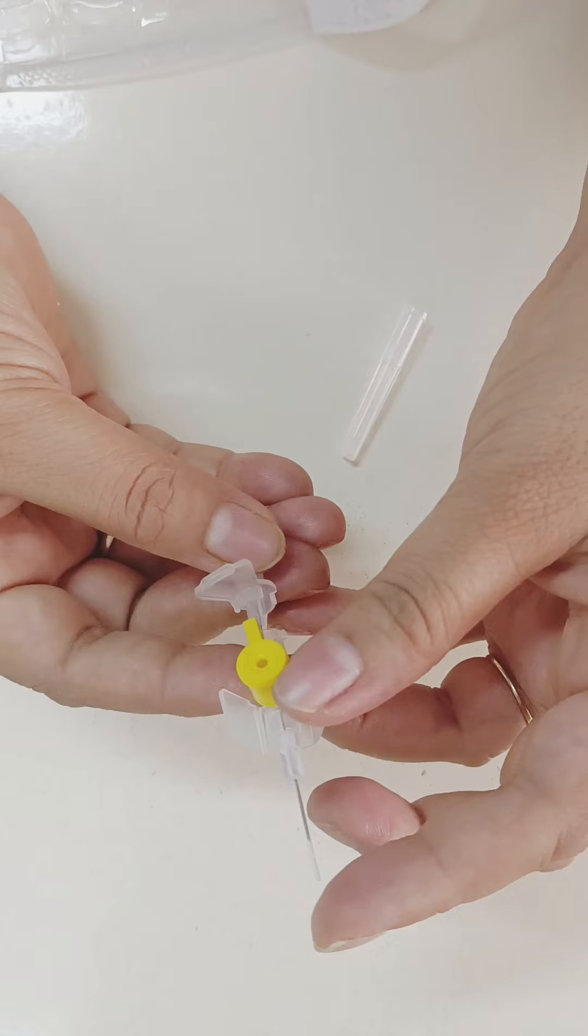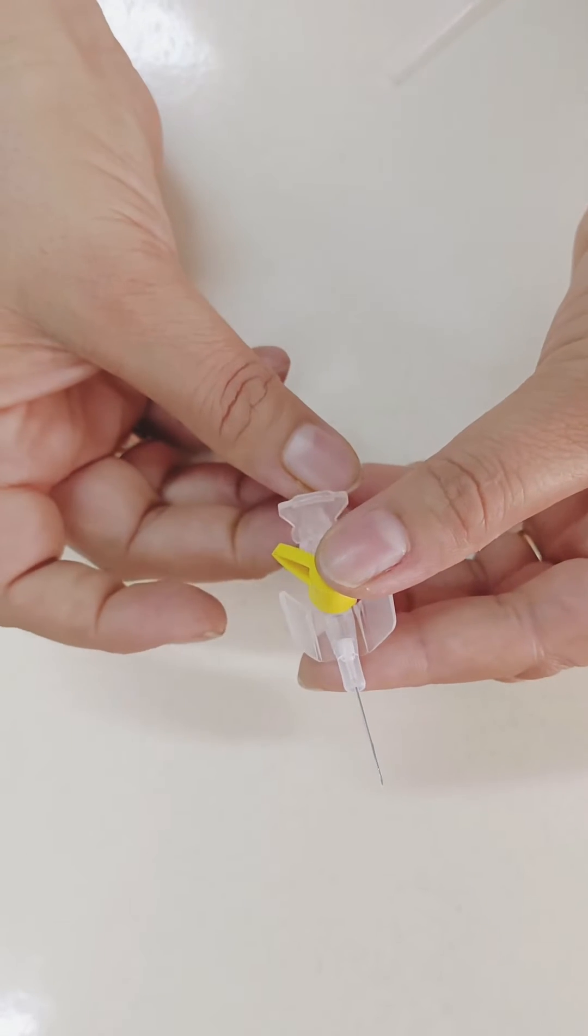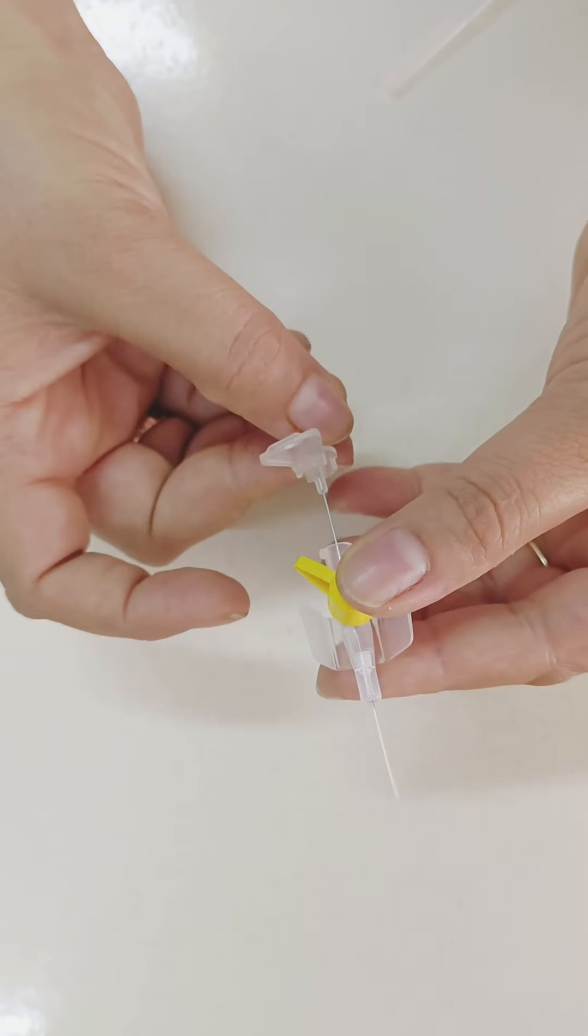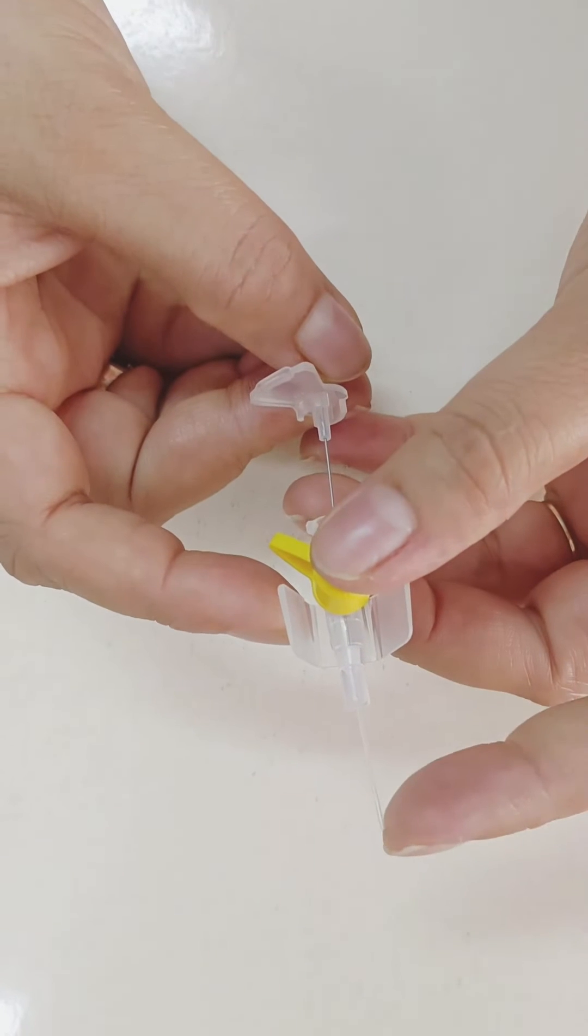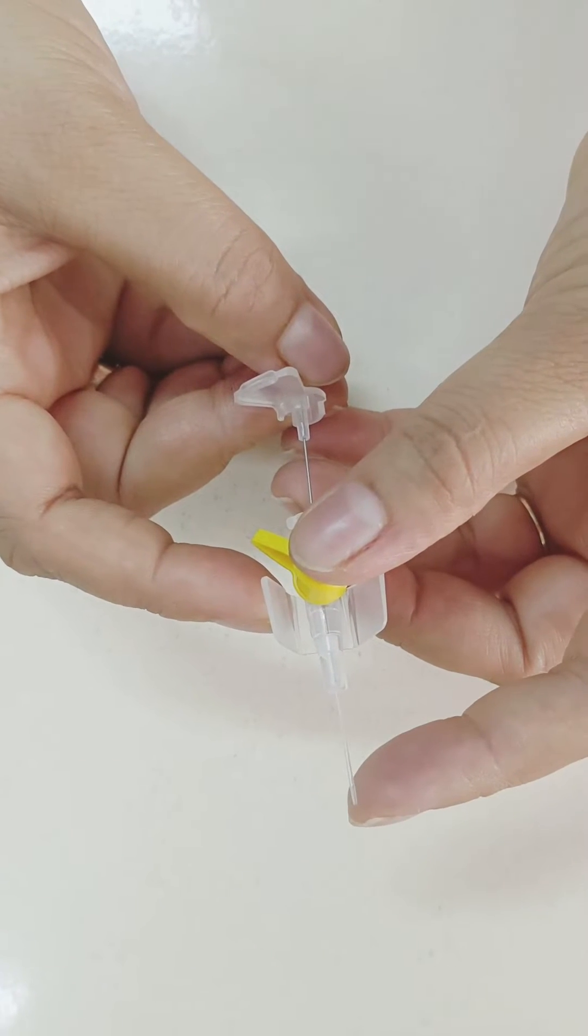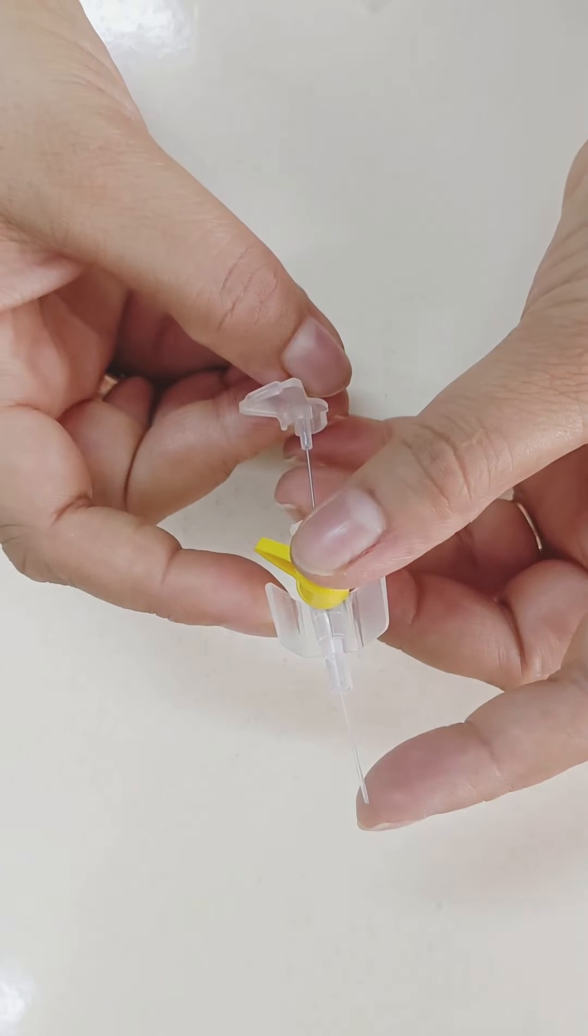This is catheter. After insertion, needle will be removed and catheter remains inside the vein for infusion.